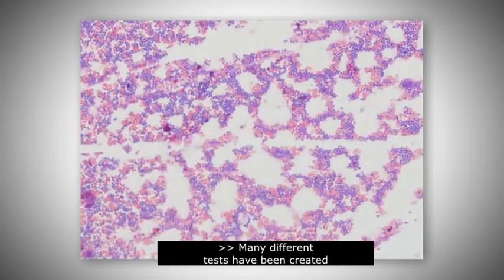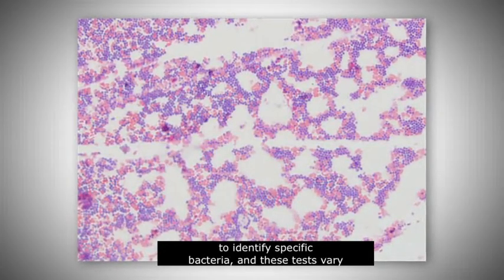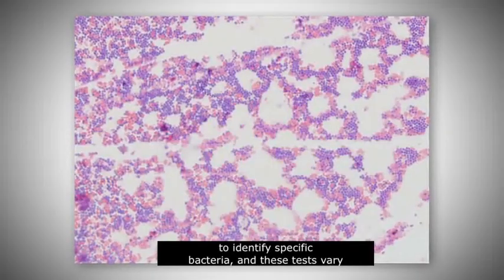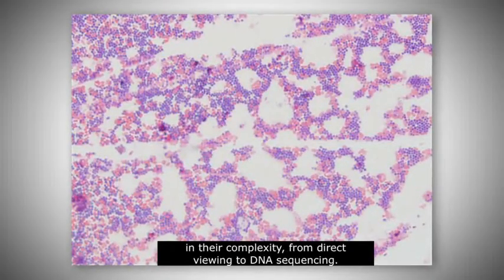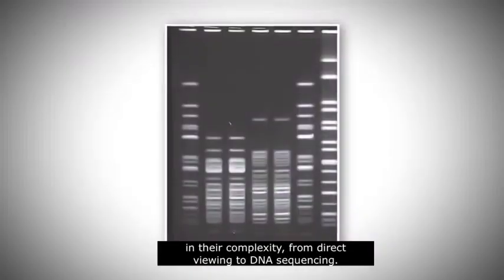Many different tests have been created to identify specific bacteria, and these tests vary in their complexity, from direct viewing to DNA sequencing.